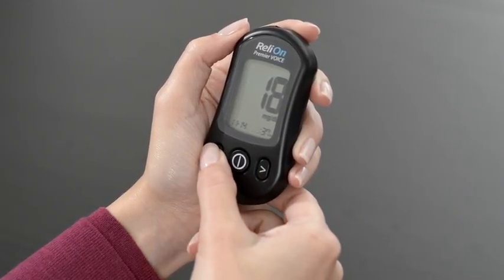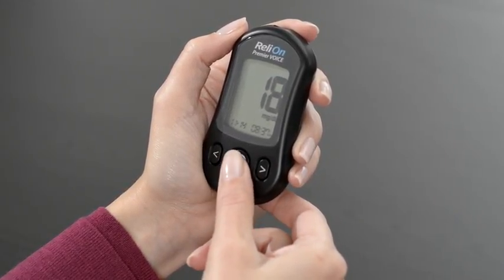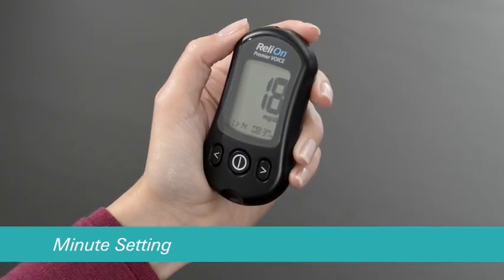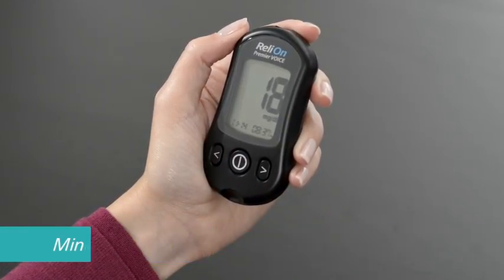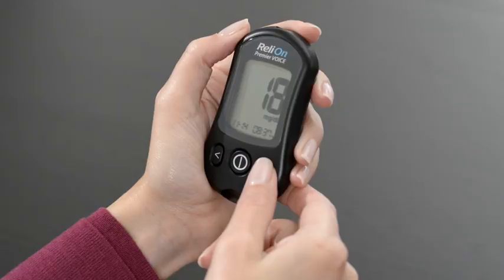Then press the center button to proceed to the minute setting. Use the left or right arrow buttons to set the minute.